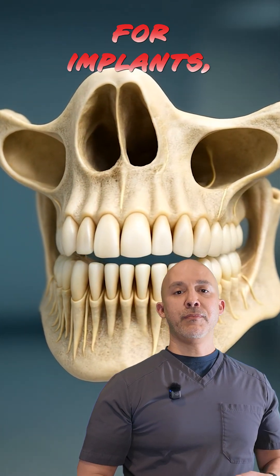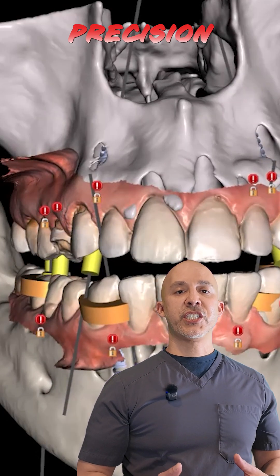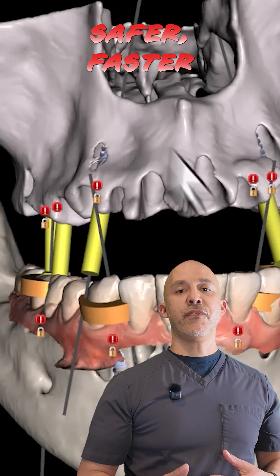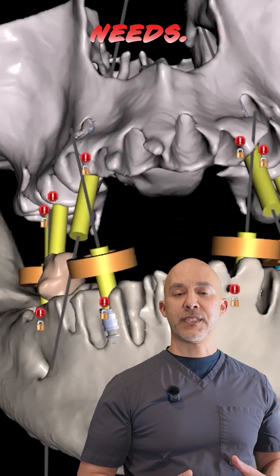For implants, wisdom teeth, or jaw surgery, CBCT is the precision tool we trust — safer, faster, and built for the details oral surgery needs.